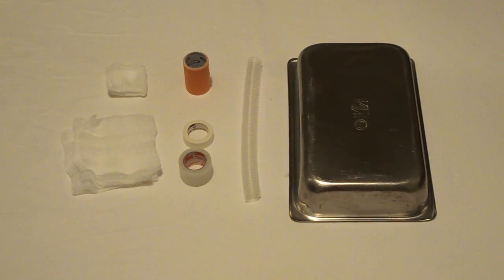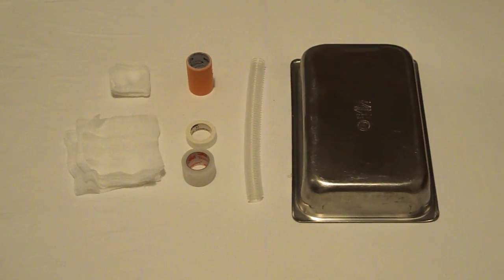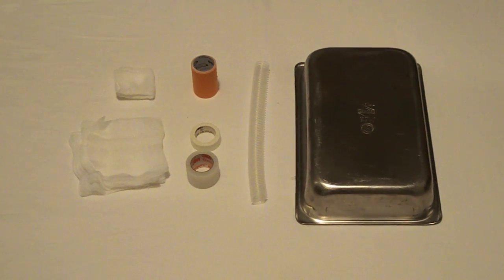Hi there, my name is Chris Bond from the SockMob blog. Today I'll be showing you how to make your own homemade cricothyroidotomy trainer.